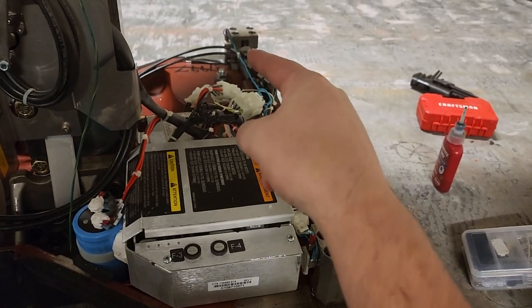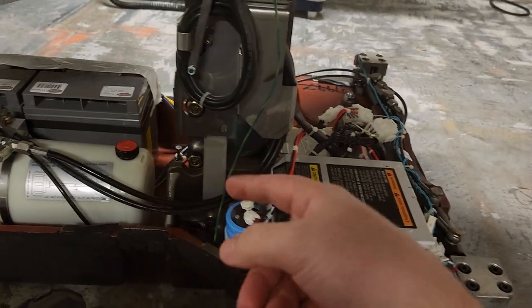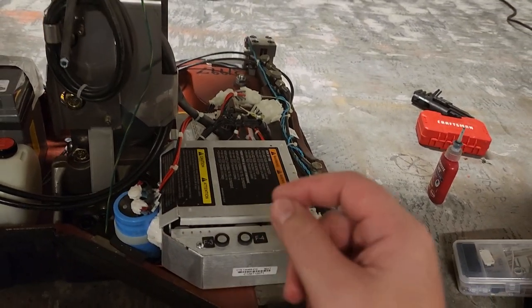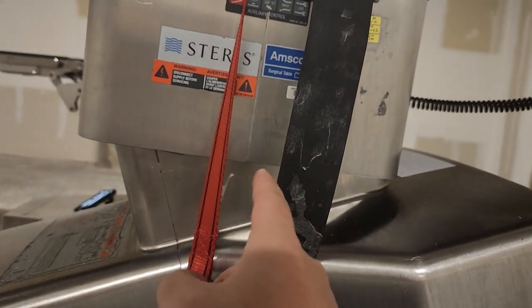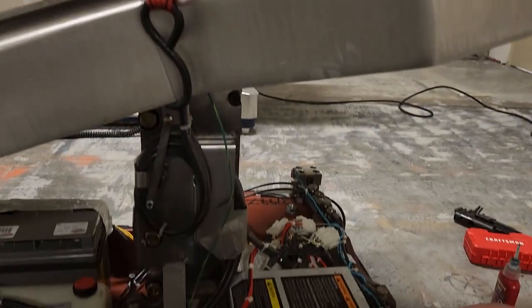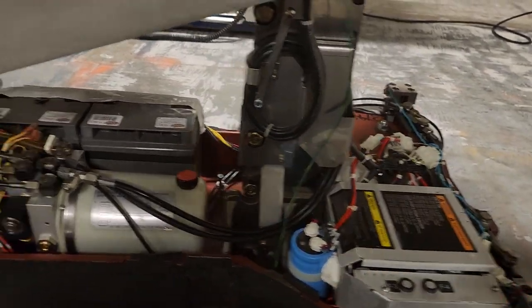So now it's currently locking. Had to fill up the hydraulic fluid, had to reattach this guy because you have to pull it away to get to this component, and now everything's working. Next is to fix the skew in the shroud — I don't know what happened there — but I'm going to lower it down and reassemble all the shrouds and it should be good to go.